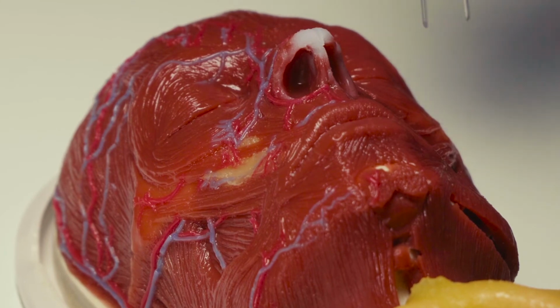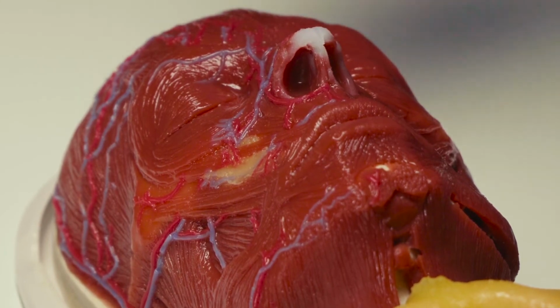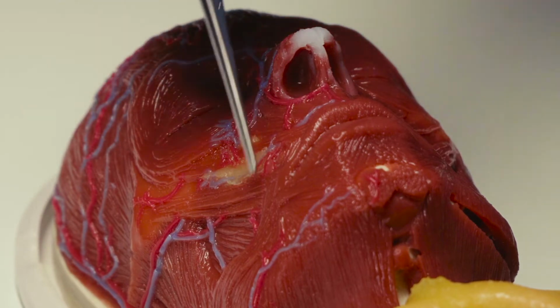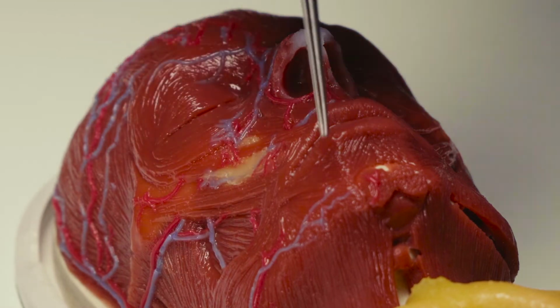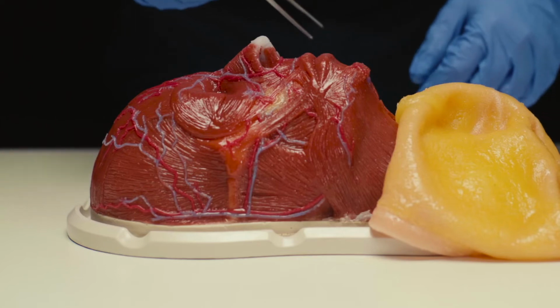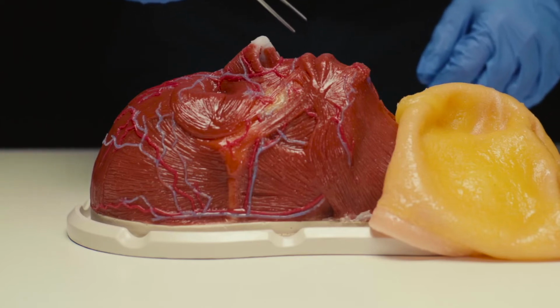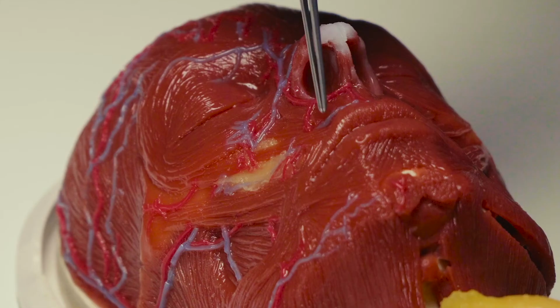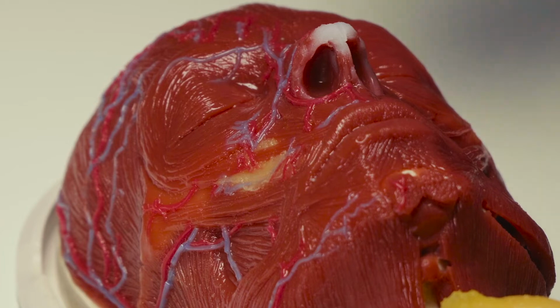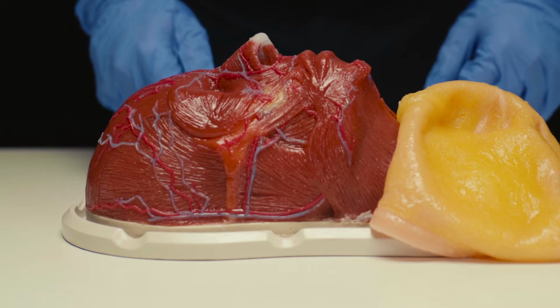Thus, you can identify the main muscles, like the frontal, corrugator, orbicularis, zygomaticus minor, zygomatic major, risorius, depressor anguli oris, mentalis, labial muscles. Notice that the shape and insertion of every muscle are very similar to what happens with real-life muscles. This simulator is very useful to practice and teach young doctors the uses of botulinum toxin, for instance.